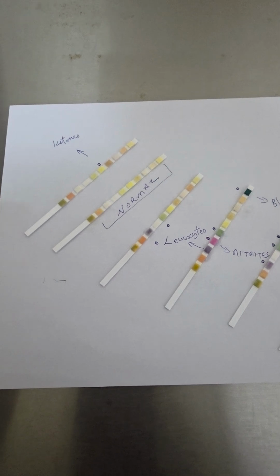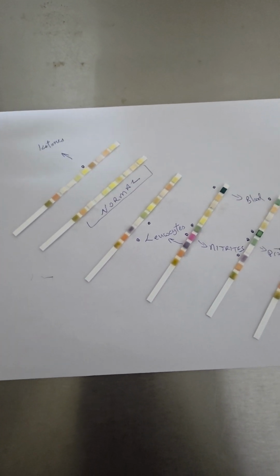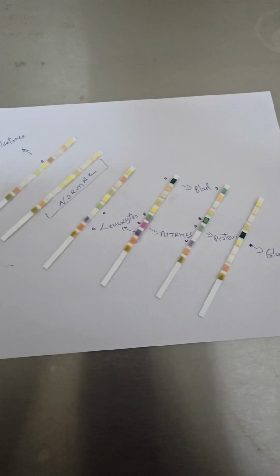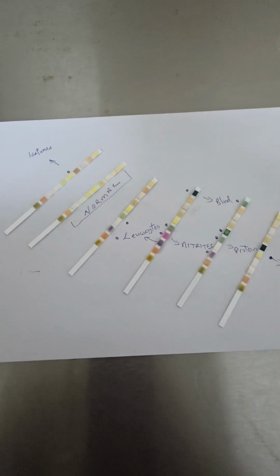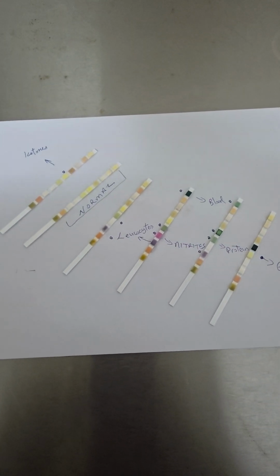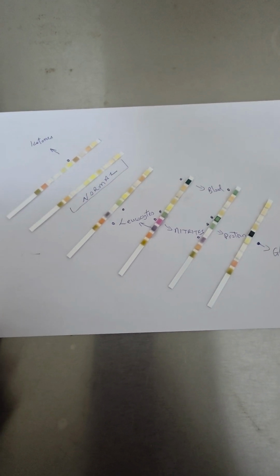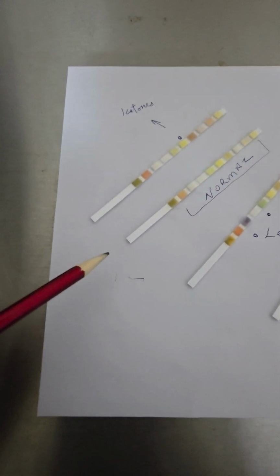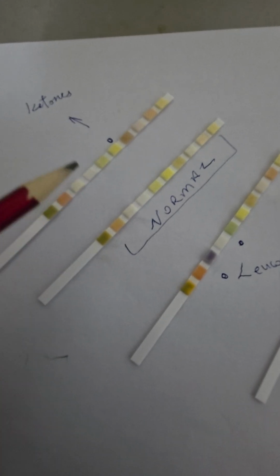Of course, in the diagnostic realm, you want to use the best strip, you want to do the procedure properly, and you want to examine it at a certain time. These are the things that our students are also given information on, not only how to do a test, but how to do it properly and even examine it properly. So you see this one here, this is a normal strip. Every single dot here is an abnormal thing.